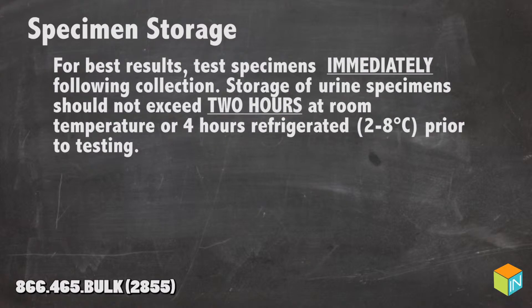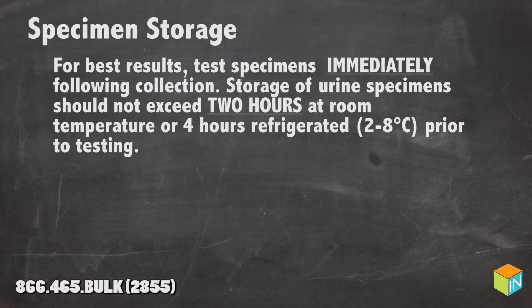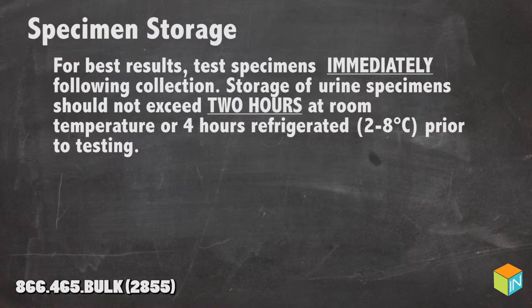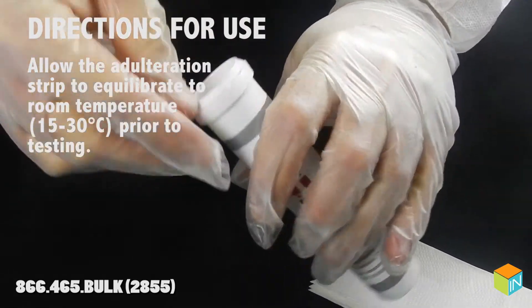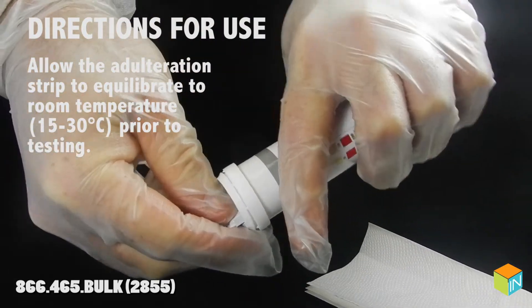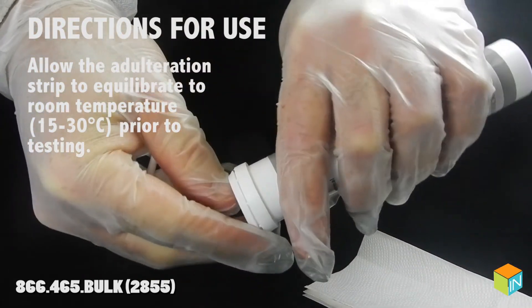Specimen storage. For best results, test specimens immediately following collection. Storage of urine specimens cannot exceed two hours at room temperature or four hours refrigerated prior to testing. Allow the adulteration strip to equilibrate to room temperature prior to testing.